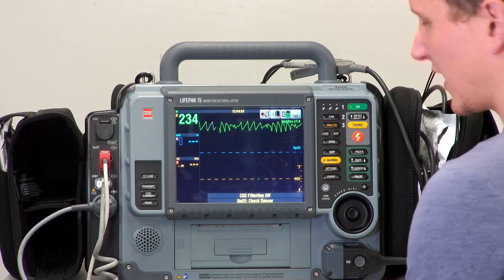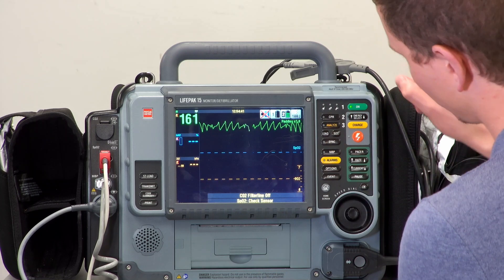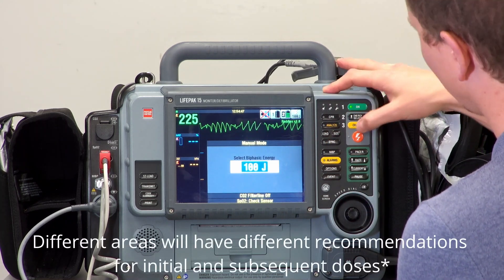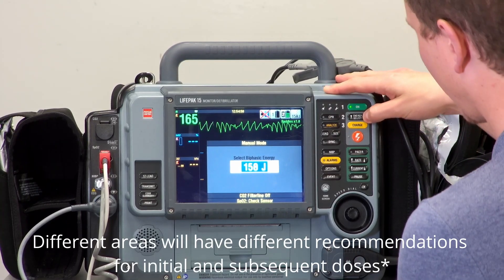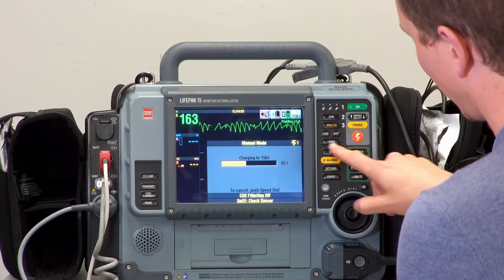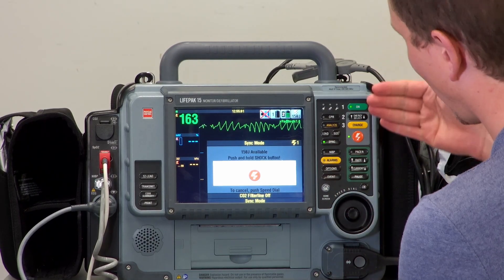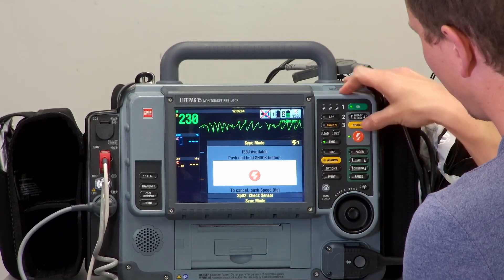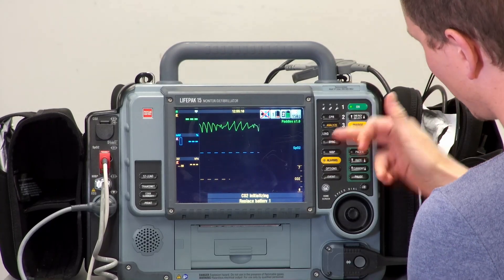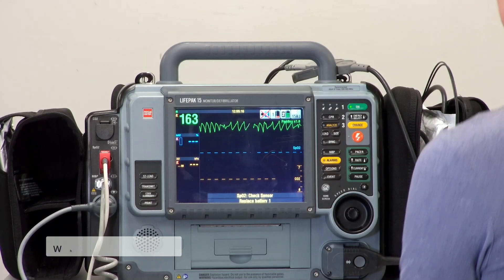That would be your cardioversion. Always remember: after each shock, sync turns off automatically. So after each cardioversion, we need to put sync back on. If the first shock at 100 joules doesn't work, we can increase to 150, then to 200. Select 150, put sync back on — you'll notice it stays charged — and then shock. As you can see, after the shock the sync turns off again, so between each cardioversion you must re-enable sync.